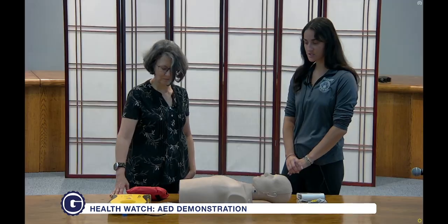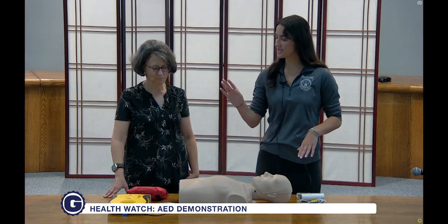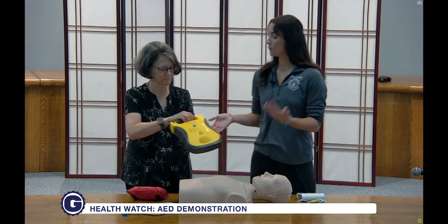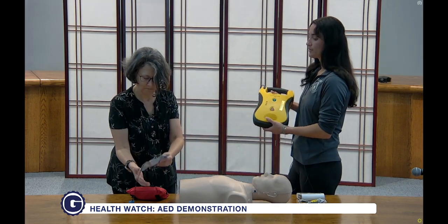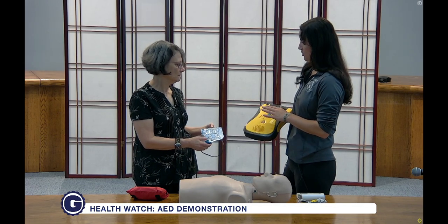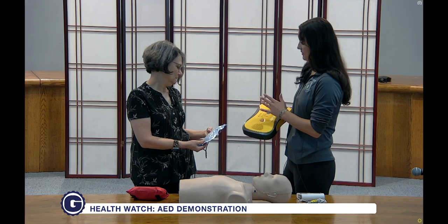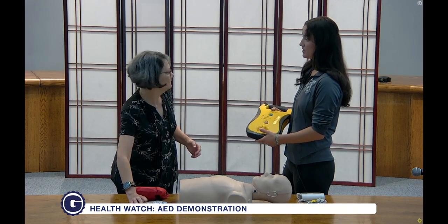Can you show us how to use one? Absolutely. So I've brought with us here today the actual AED located in the town hall. This AED is for emergency purposes only. You can see on here we simply have an on-off button, a checklist with lights next to it that will go through each of the prompts, the shock button, and a speaker.